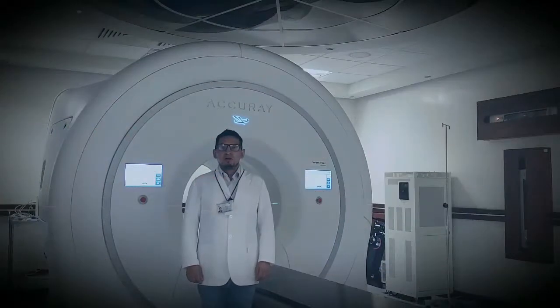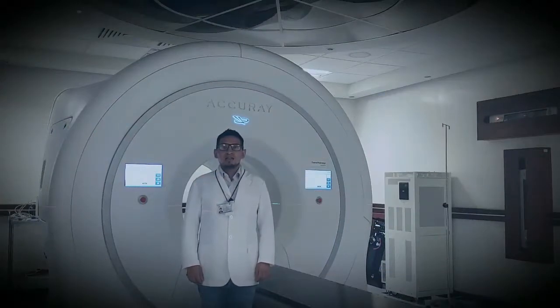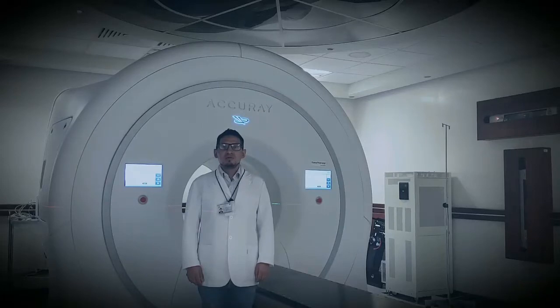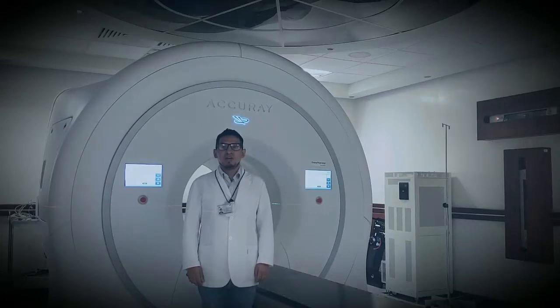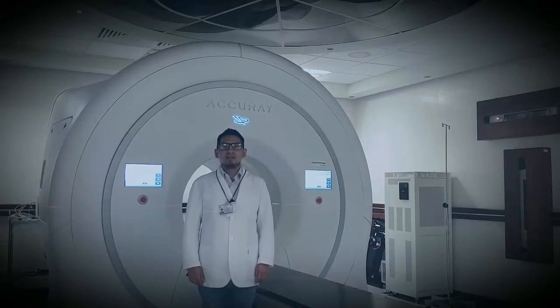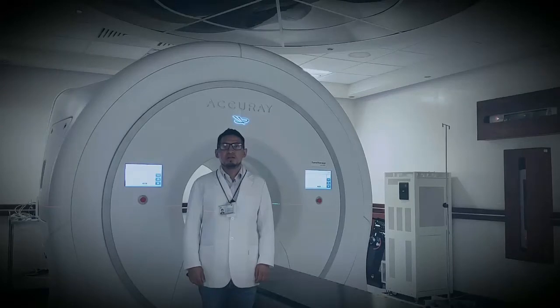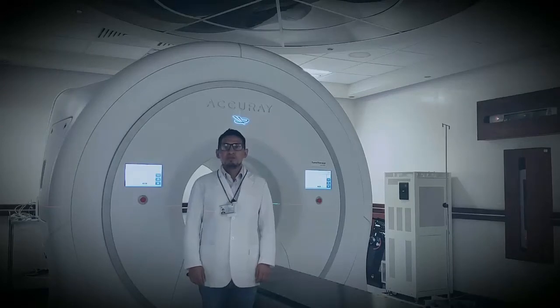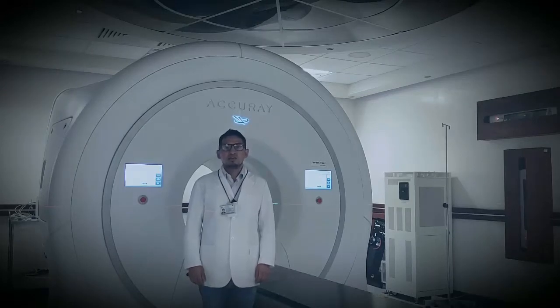From my point of view, the end-to-end test is very important, because it allows you to review the dose that the tomotherapy line is delivering in a real treatment. I hope this video is useful.